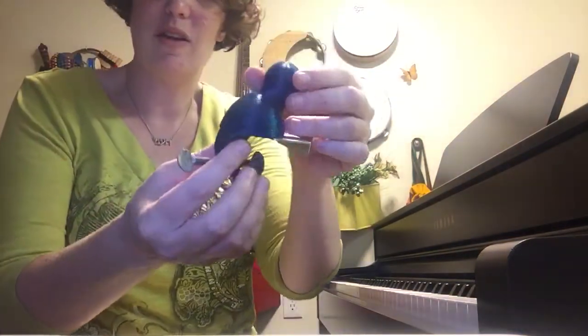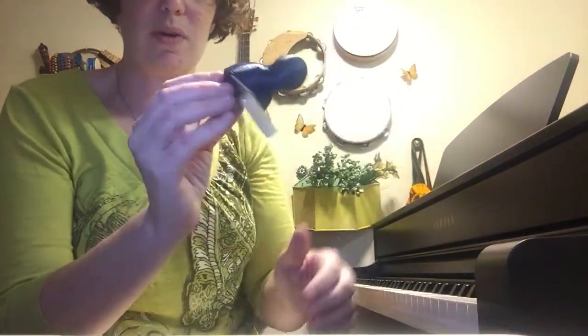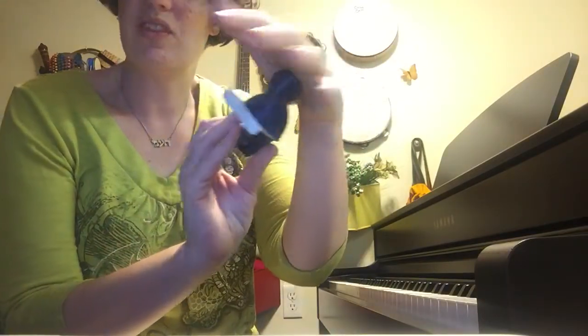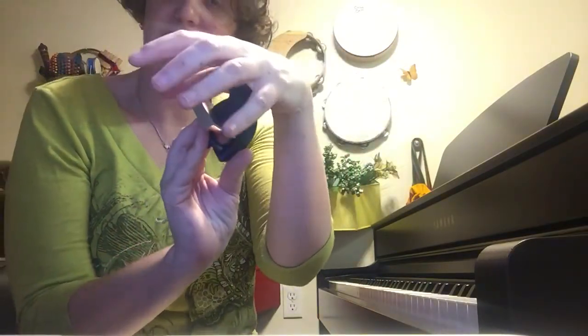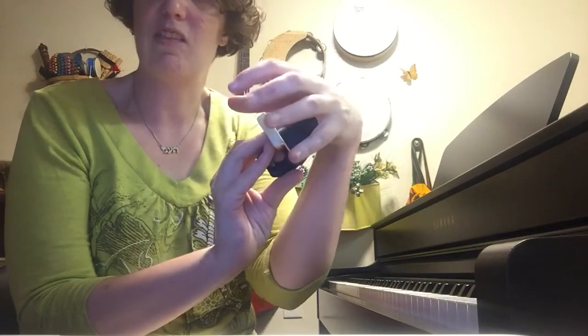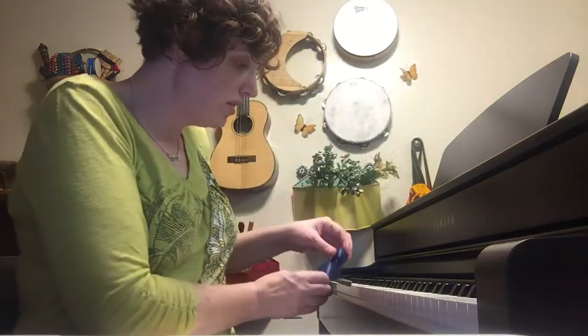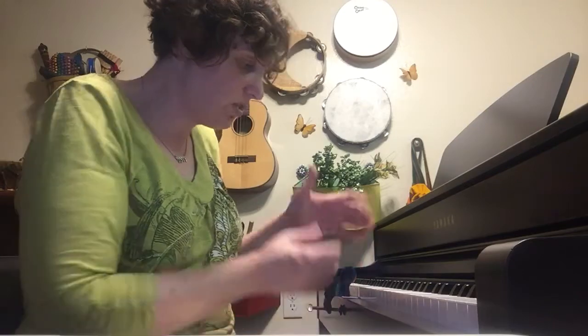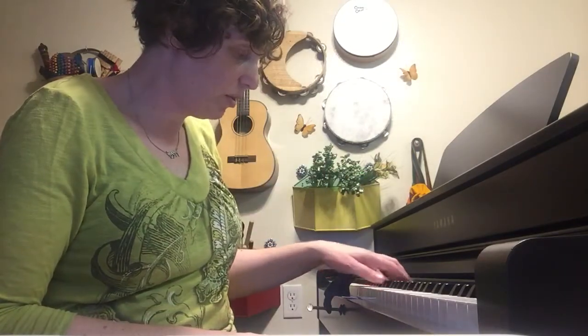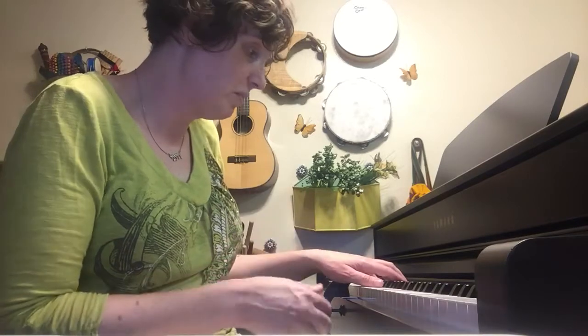This is the plastic version, which is the Perfect Perch. When the student puts the hand onto it, it makes the nerves in the hands become more proprioceptively aware. So in the case of dyspraxia, when there's difficulty mobilizing the fingers, the fingers move a lot easier because they have some proprioceptive input.